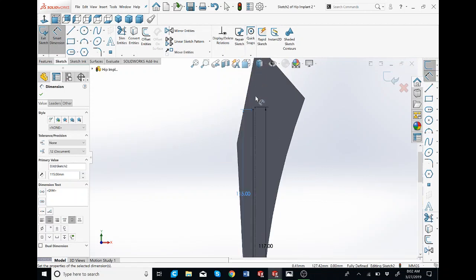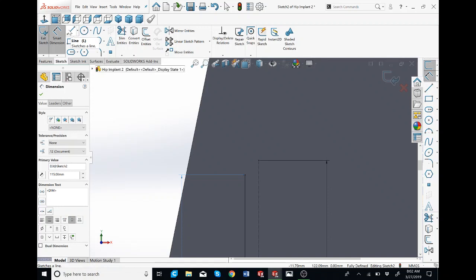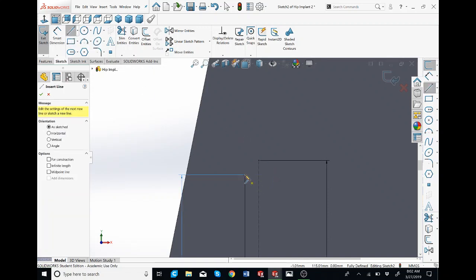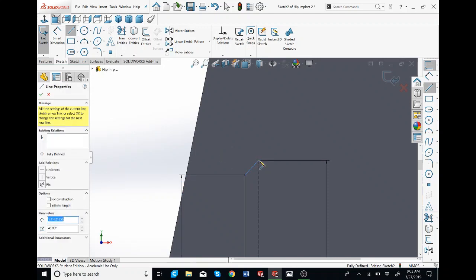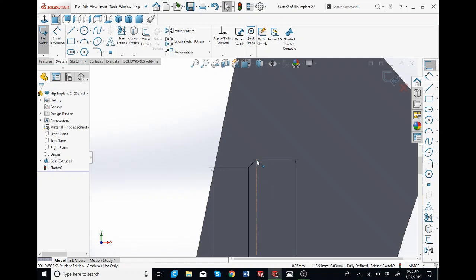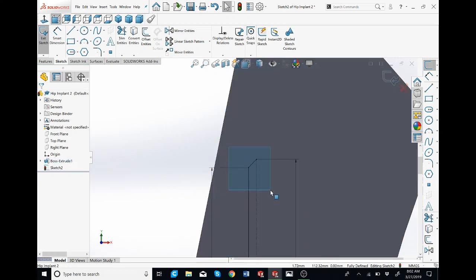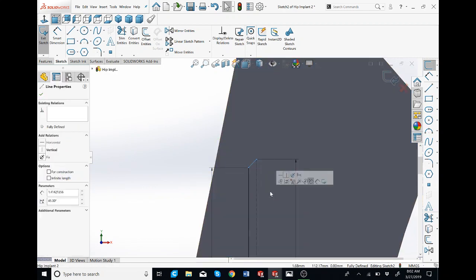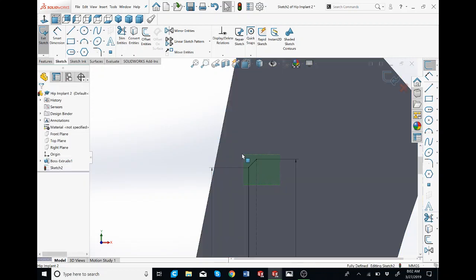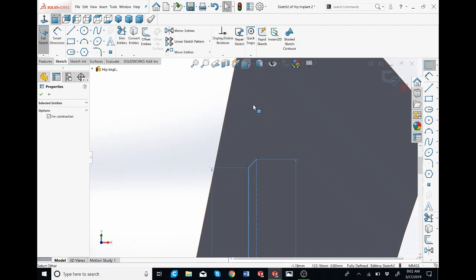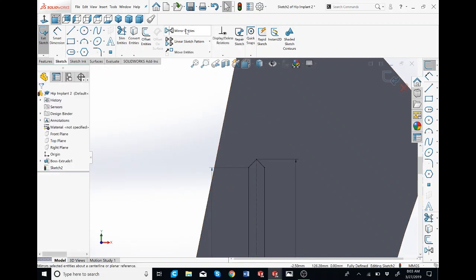I'm going to zoom out and zoom into the top. I'm going to make a line — you can press L for line. Click on this point, connect it to this point, hit escape to get out of it. So instead of making the other two lines the same way, because it's symmetrical, I'm just going to mirror it. An easy way to use the mirror function is to make a box — click your left mouse button and drag it to the left. You see it's a green selection box, and when you let go it highlights the whole thing. It doesn't work if you drag left to right. So we're going to drag to the left, let go, and then go to mirror entities and click it — and it just fits right to it.